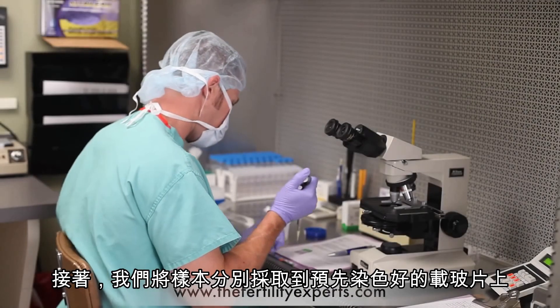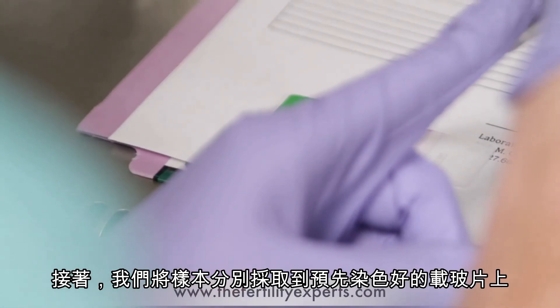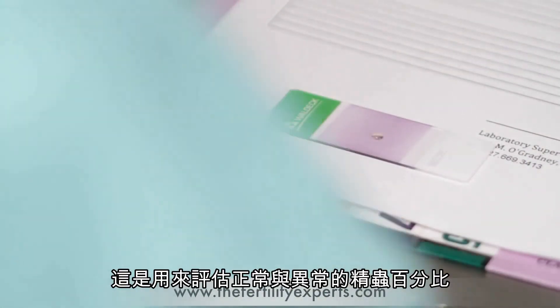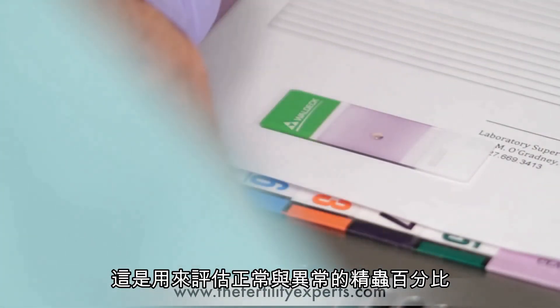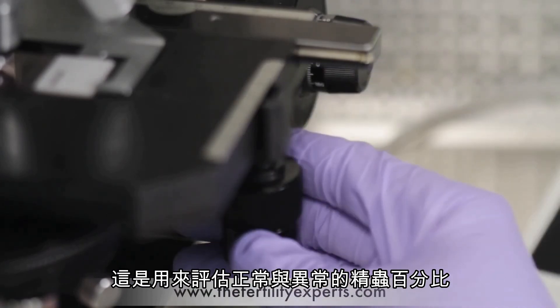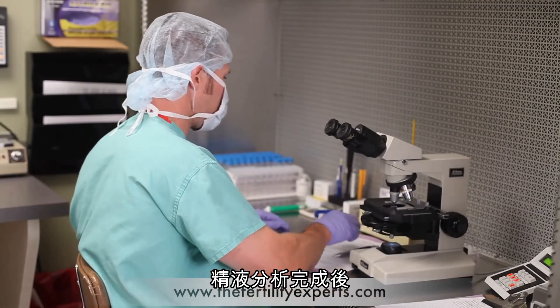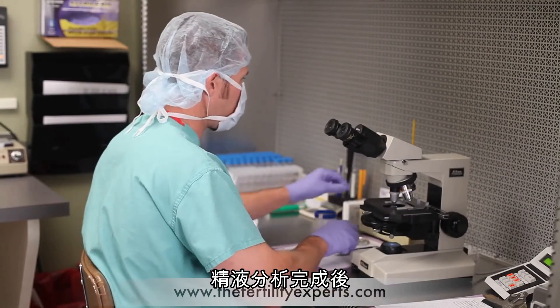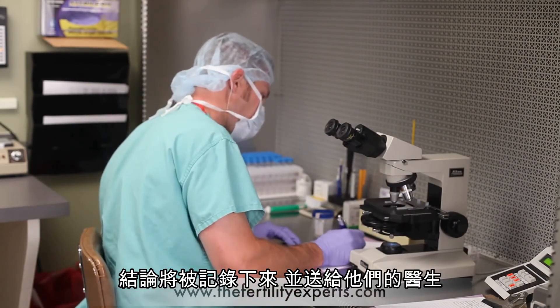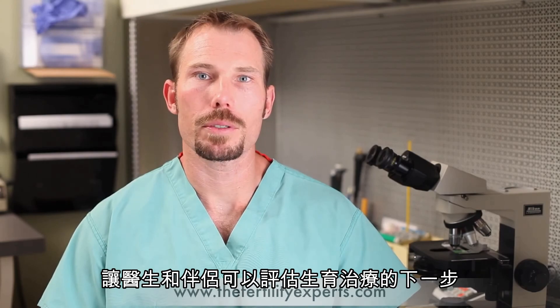Next we prepare a morphology slide by aliquoting a portion of the sample onto a pre-stained slide, which will be read to assess the percentage of normally and abnormally formed sperm. Upon completion of the semen analysis, the results are recorded and sent to their physician, allowing them to assess the next step in the couple's infertility treatment.